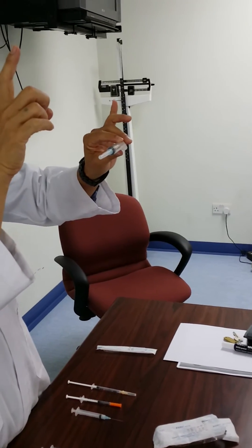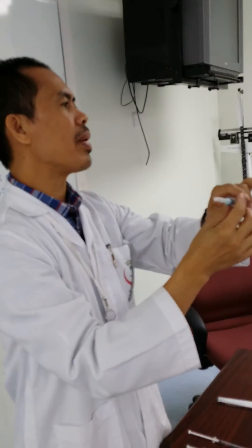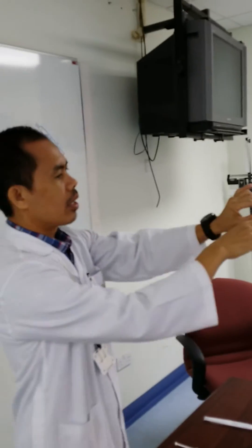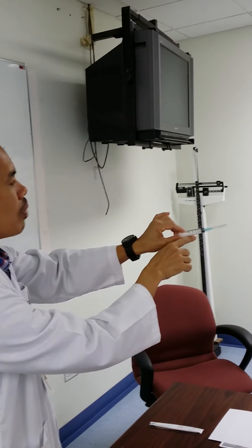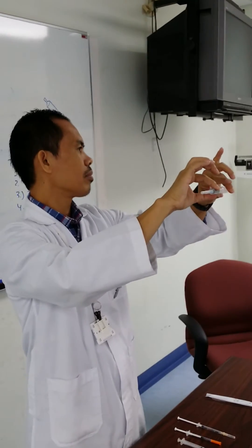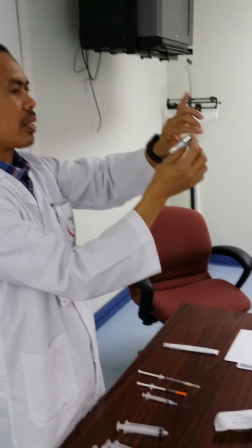Always remember: when you want to put the dose of medicine into the syringe, make sure it is at your eye level. The ml calibration on the syringe should be focused in the middle of your eye — like this. Not like this, not like this, but like this.